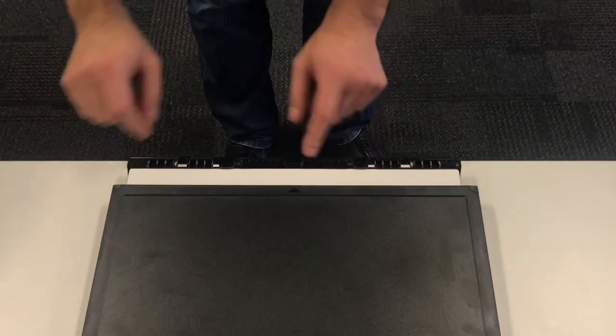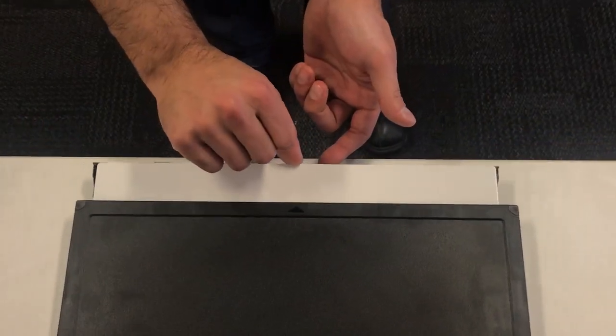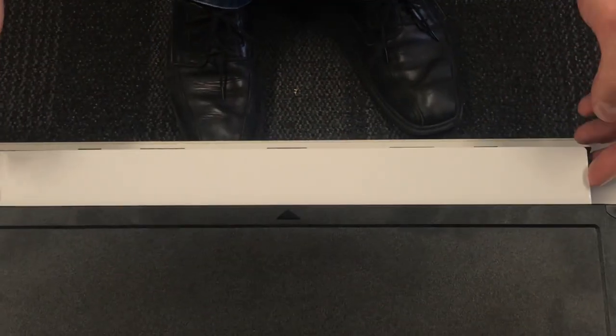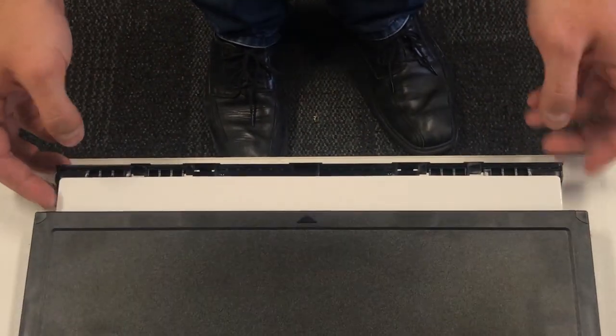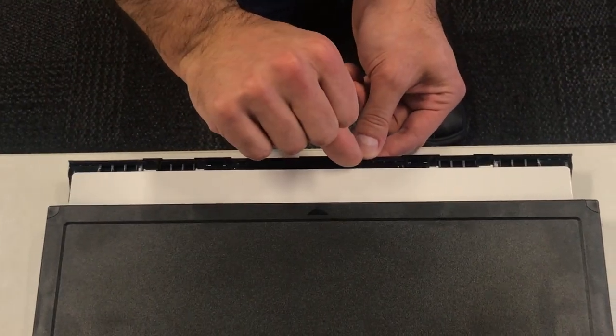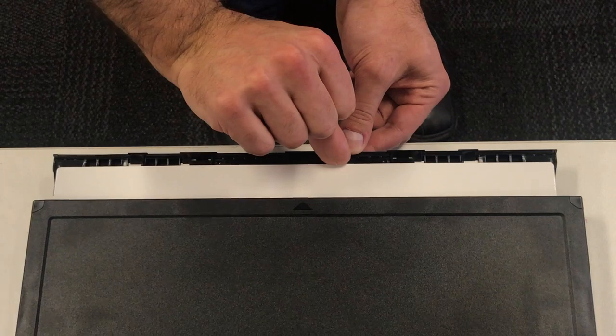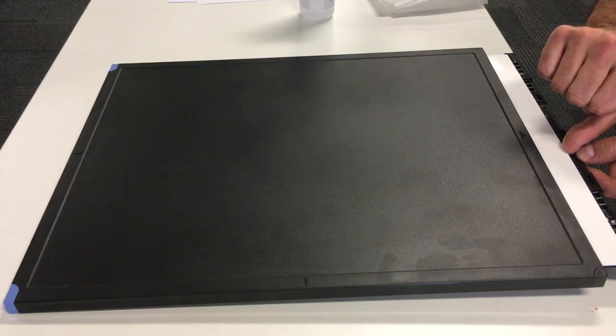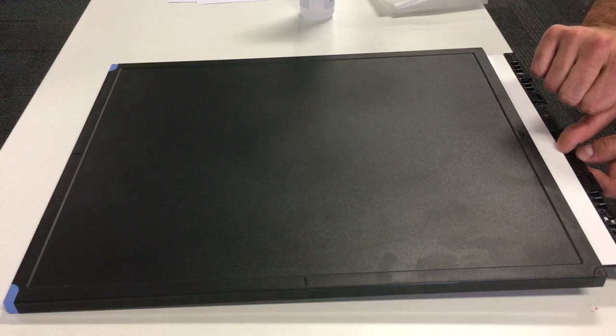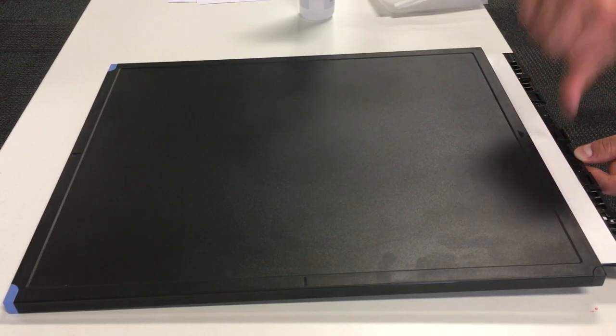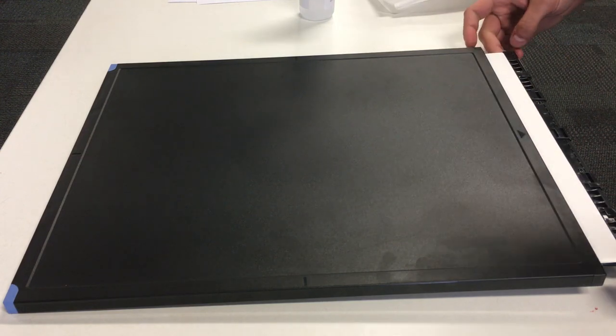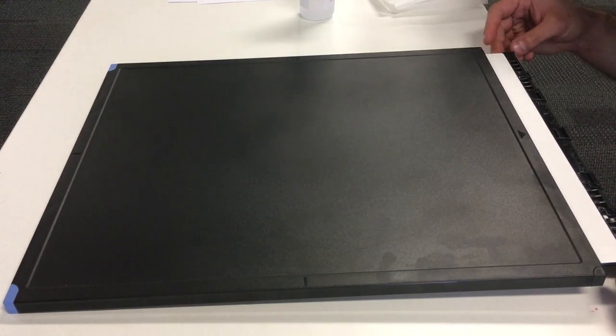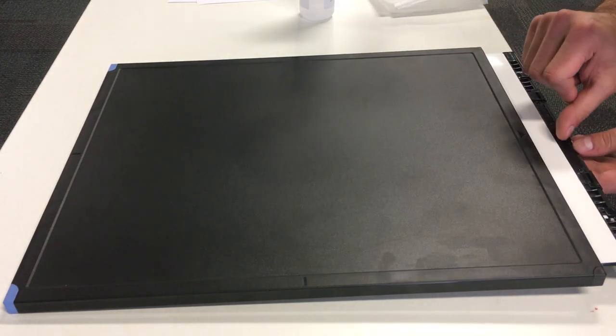So I'll show that again. Pop it. It pops. I go like this. So once you hit the end, you just go to the corner of the plate. Push it a little bit more down. And then leave it like that. So it's all sitting down properly.